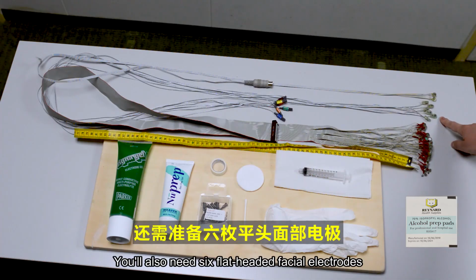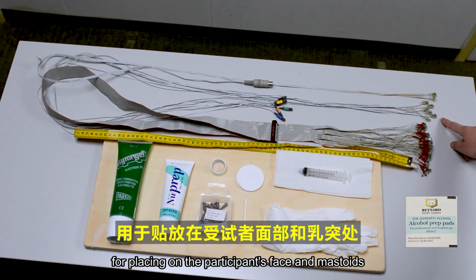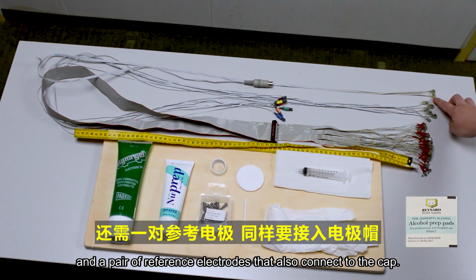You'll also need 6 flat-headed facial electrodes for placing on the participant's face and mastoids, and a pair of reference electrodes that also connect to the cap.